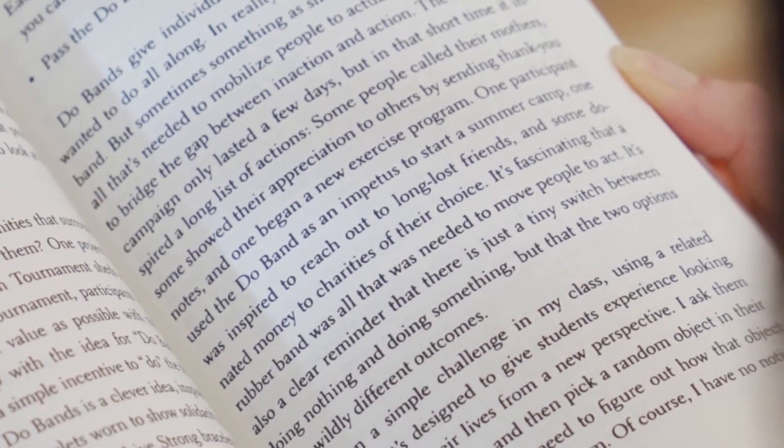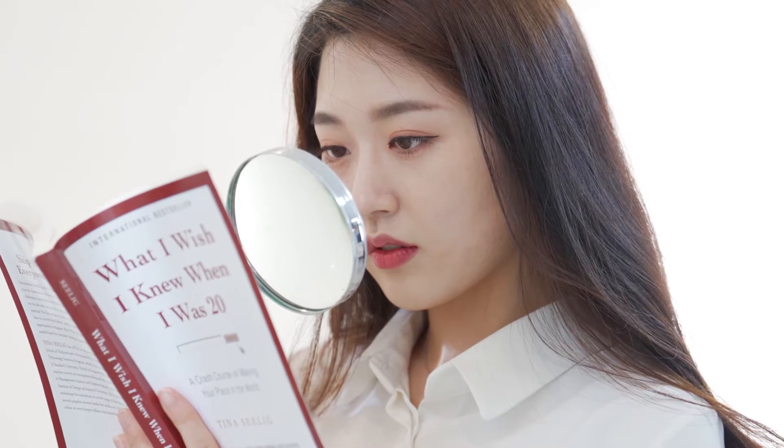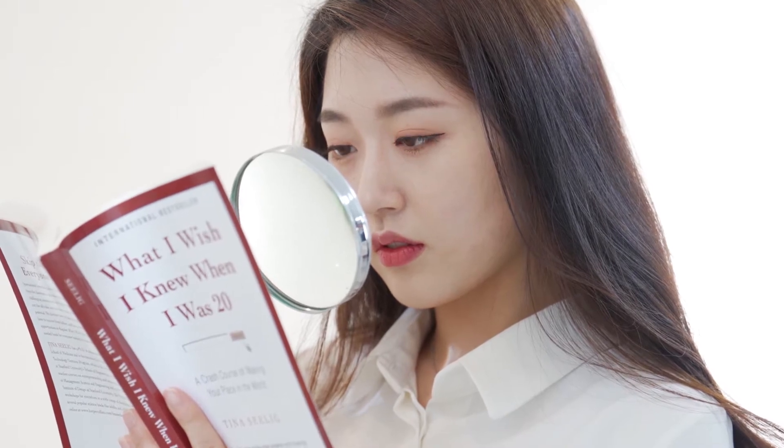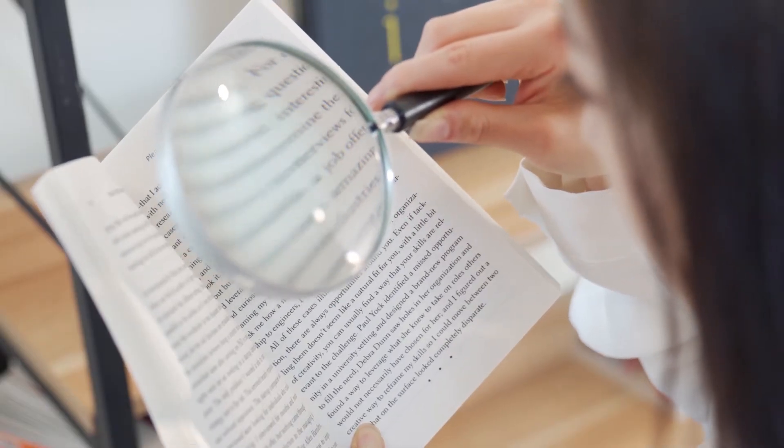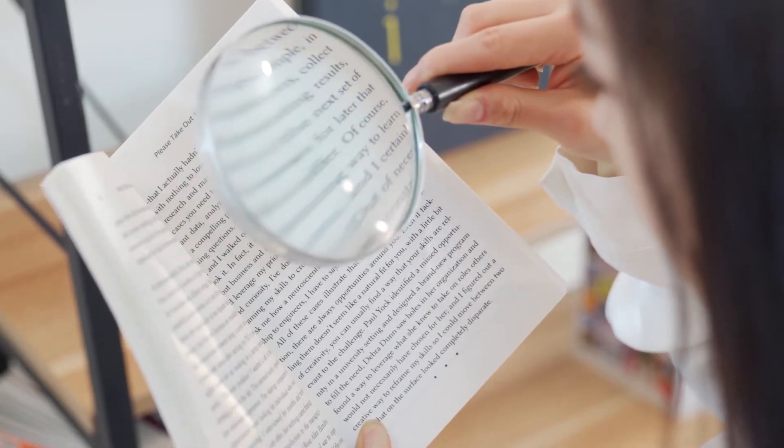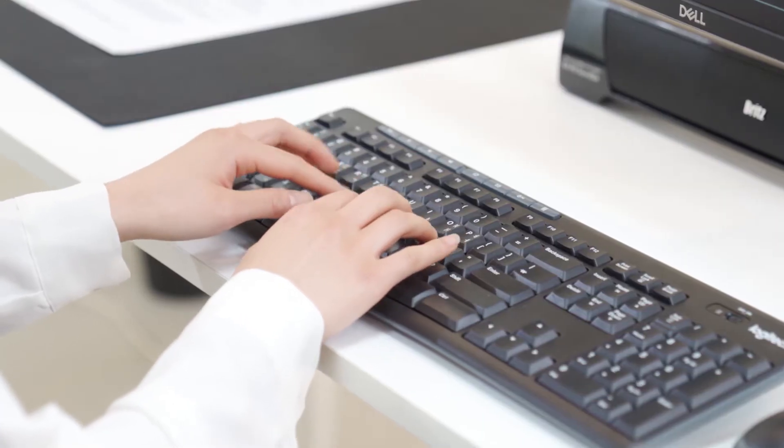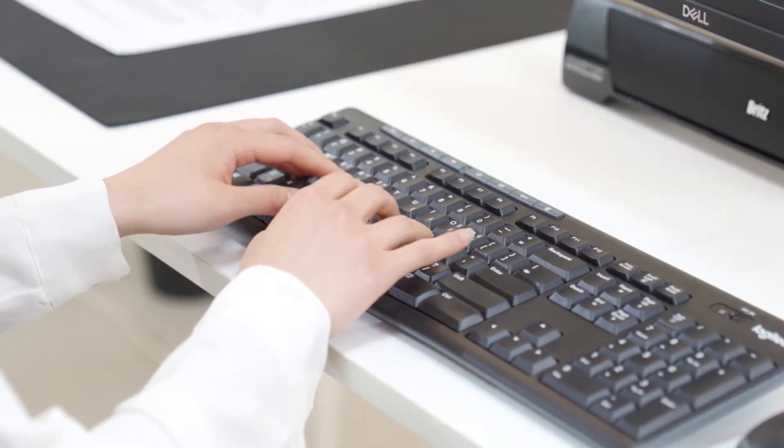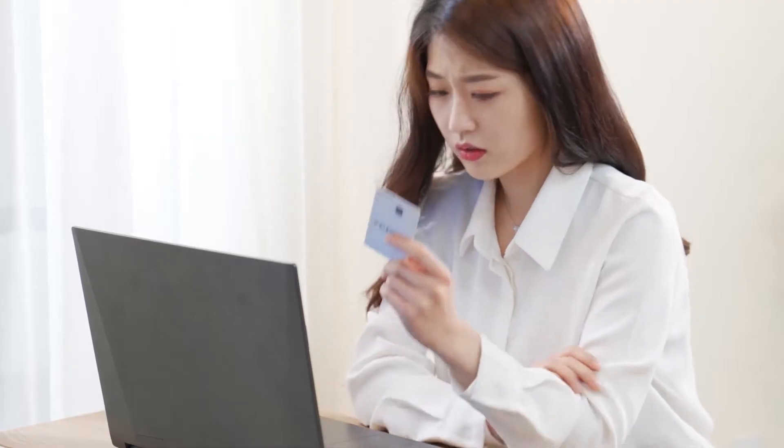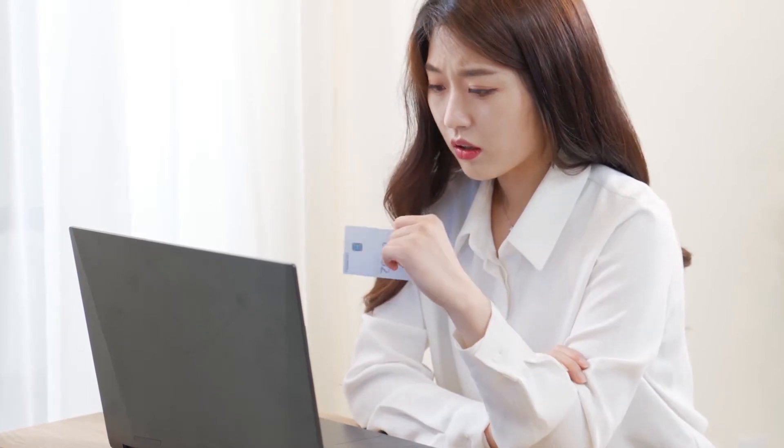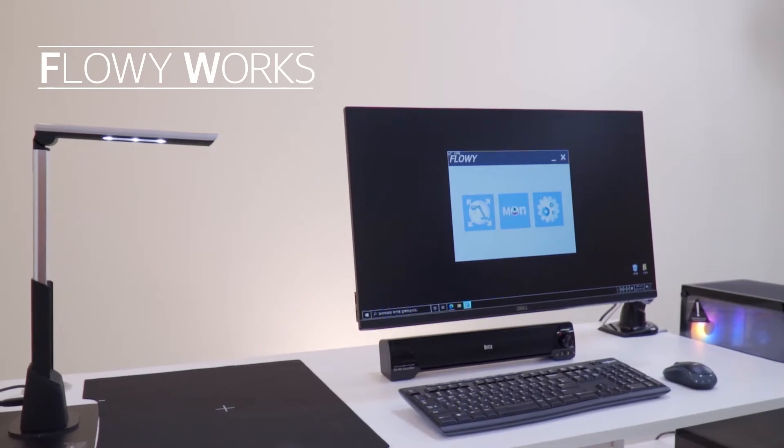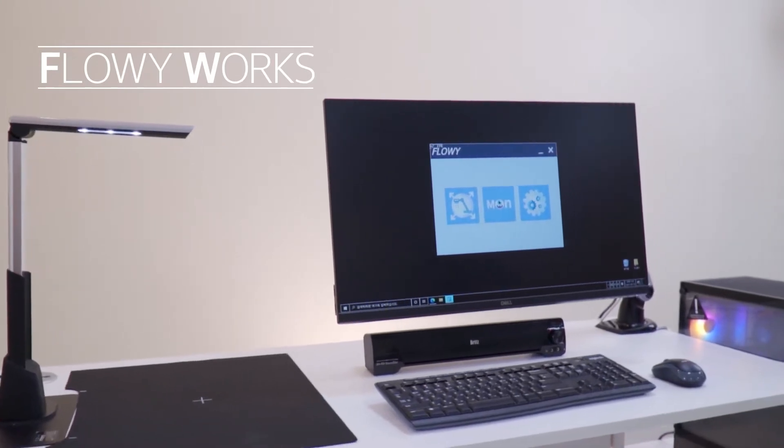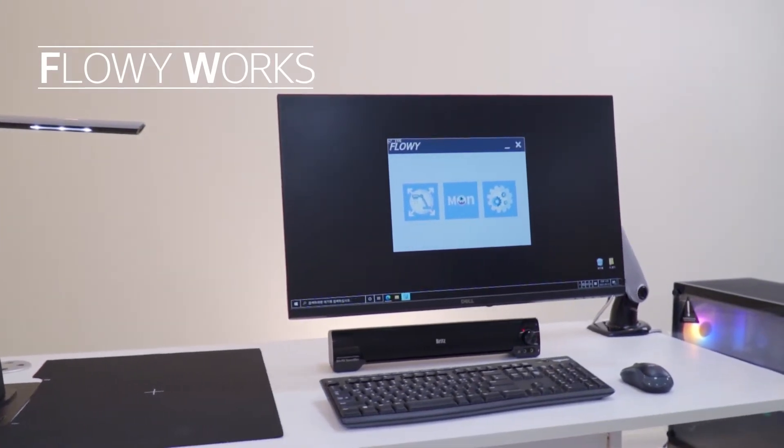There are a lot of video magnifiers in the world. Existing video magnifiers have powerful features, but they are less frequently used in daily life or work. When using a computer, it was expensive for using the screen magnification software separately. So we created Flowyworks, an AI-based video magnifier solution.